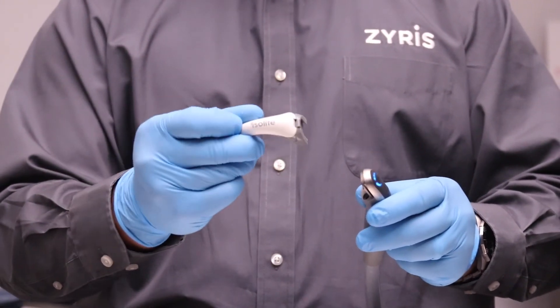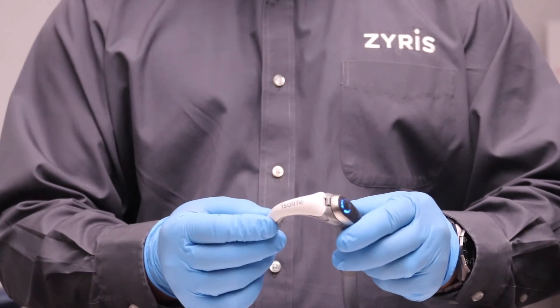You can also use the anterior adapters for anterior procedures.